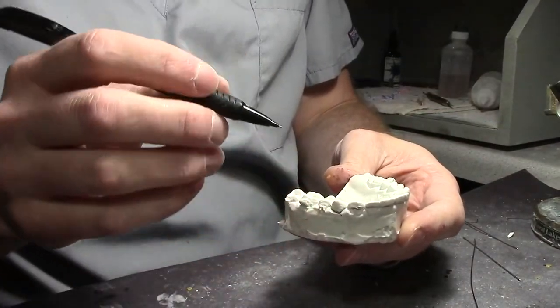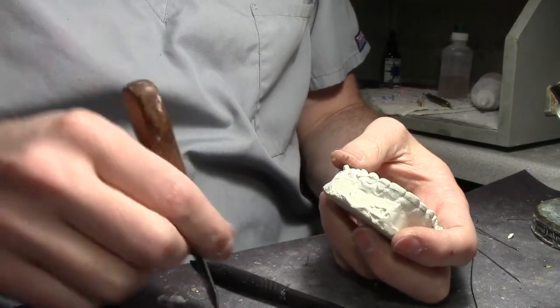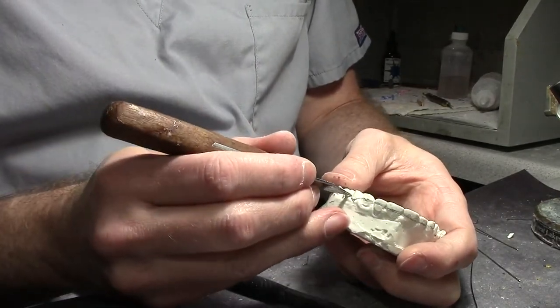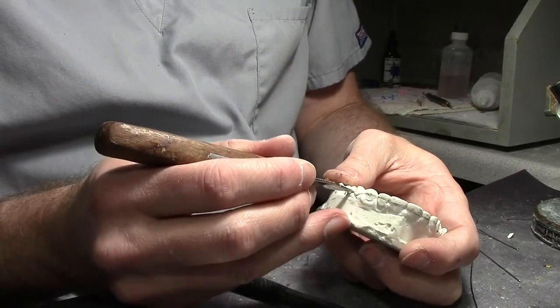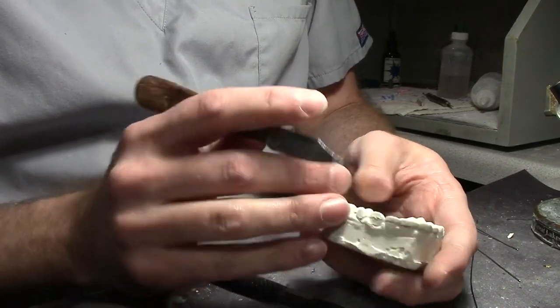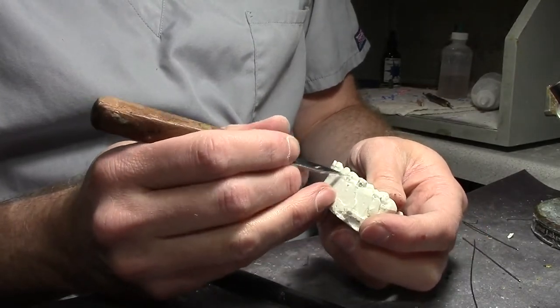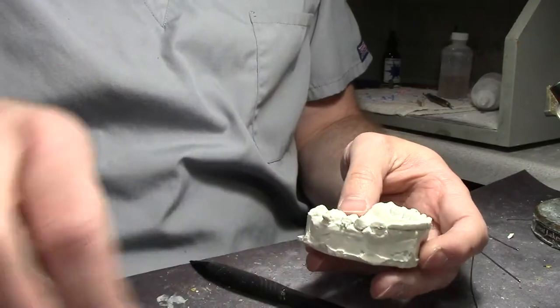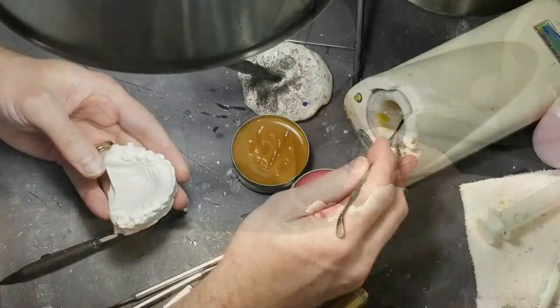I have prepped it, and what I like to do is scrape distal to the bicuspids right here to make a smooth landing for the wire. So this is where the soldered C is going to go right here. It's going to be just a regular labial bow. This is a pretty neat little appliance.